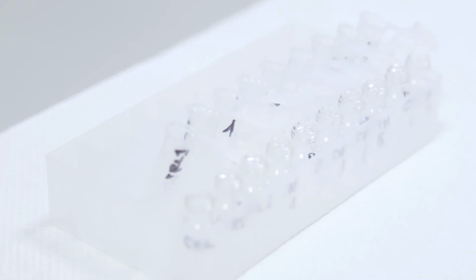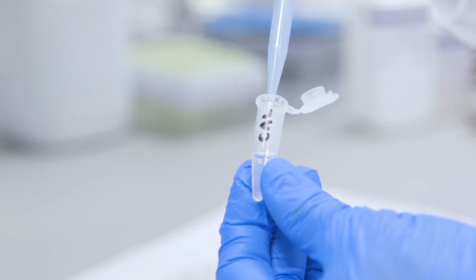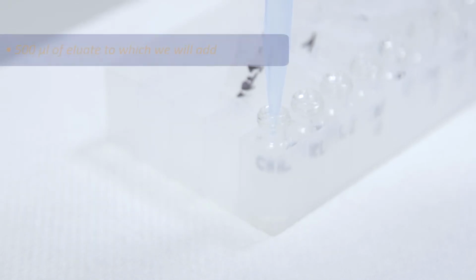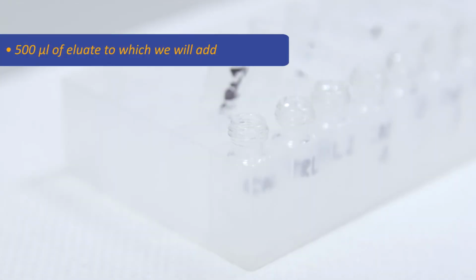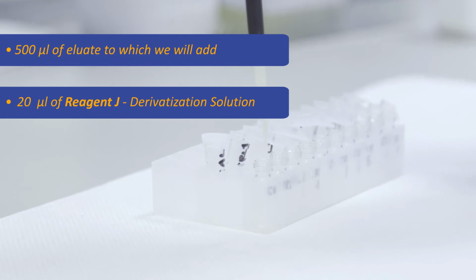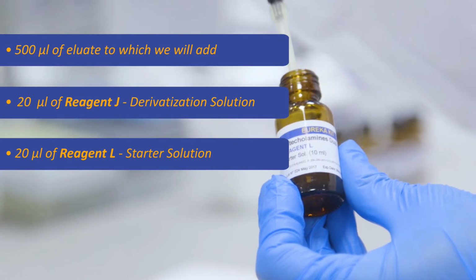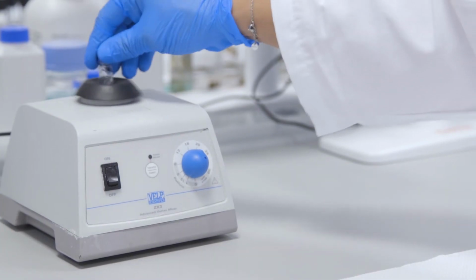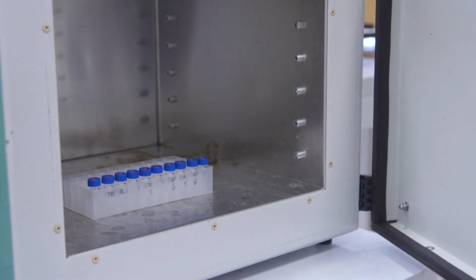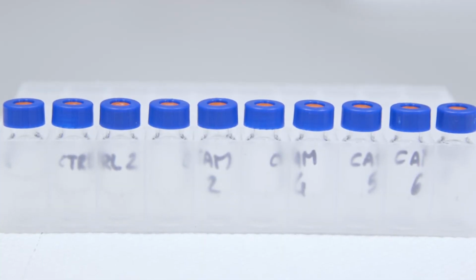The next phase involves the derivatization of the catecholamines. Pipette sequentially into a 1.5 milliliter glass vial with a reduced volume with caps 500 microliters of eluate, to which we will add 20 microliters of reagent J, derivatization solution, and 20 microliters of reagent L, starter solution. After vortexing for 5 seconds, we incubate our sample for 15 minutes at 70 degrees Celsius. Let them cool at room temperature.